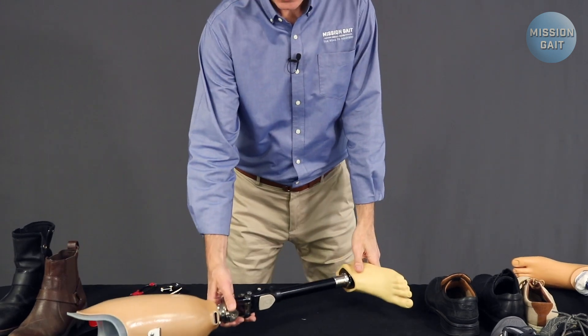Picking the right shoe is really important to get the right fit and the best walk. Once you've picked a pair of shoes that works, it's important to stay with it. For at least two to three months when first getting started, don't change the shoes — even a good shoe change will alter the feel of the walk, and you want to master your walking control first. Then you can look at various different shoes to potentially transition into over time.